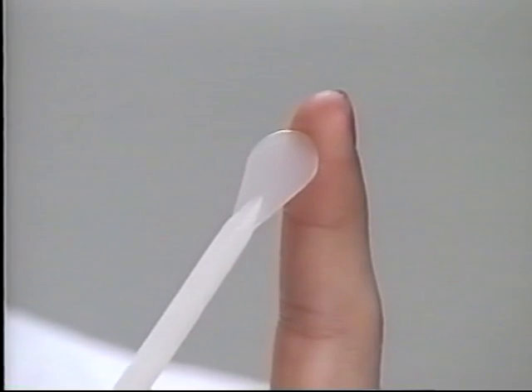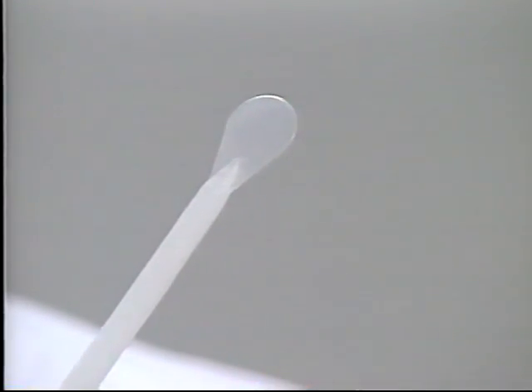As a result of CellSweep's design and specific structure, the ecto-cervix is sampled twice simultaneously in a 360 degree motion. This portion of the device can be used for ecto-cervical and vaginal sampling, such as post-hysterectomy and pregnancy.